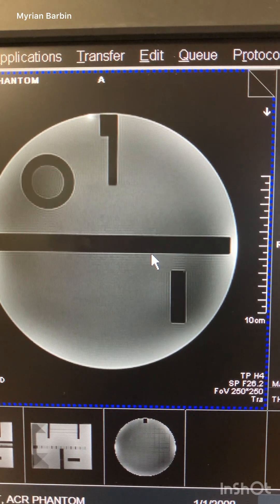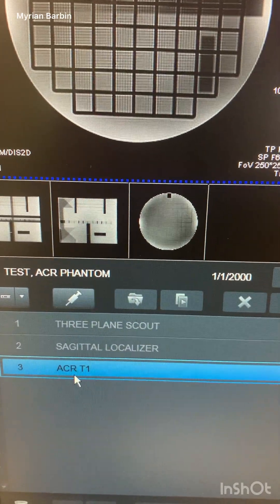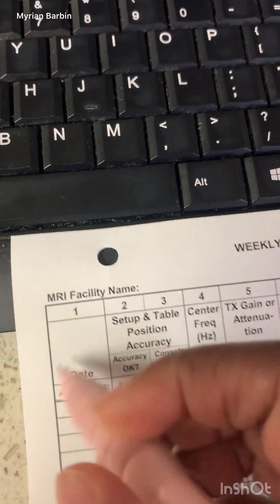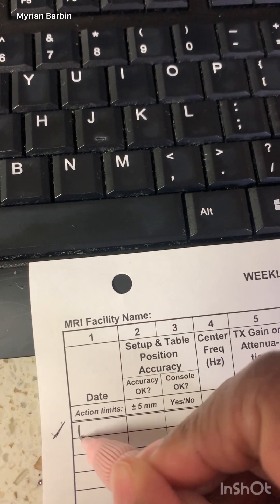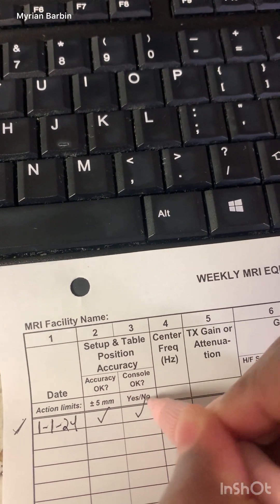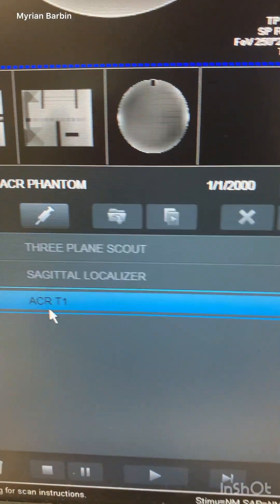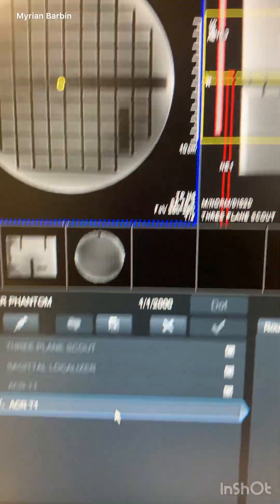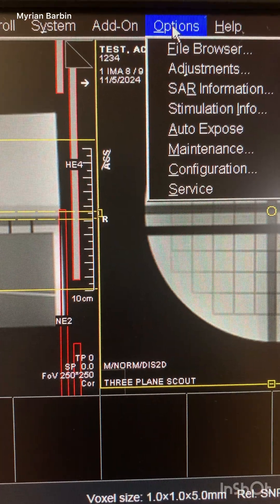I'm showing you how this is looking, and we'll go to the 3D card to show how to measure everything. For your weekly numbers, pull down the sequence — but don't run it, just double-click it — then go to Options and then Adjustments. If you don't pull it down first, it won't let you click on Adjustments.